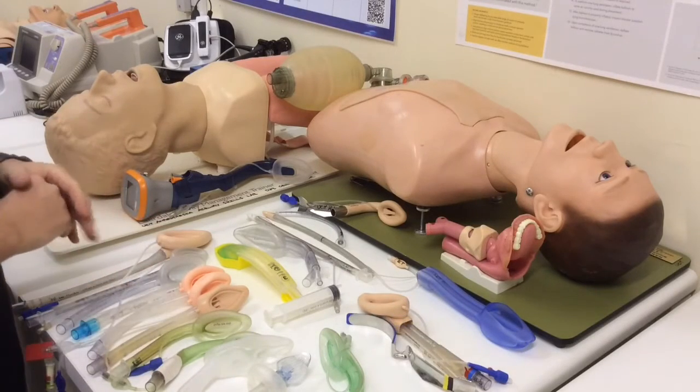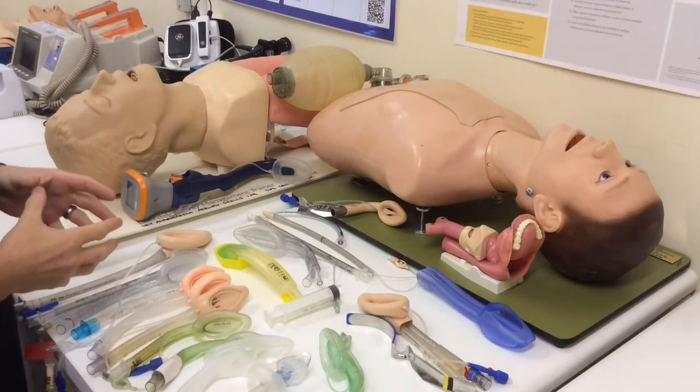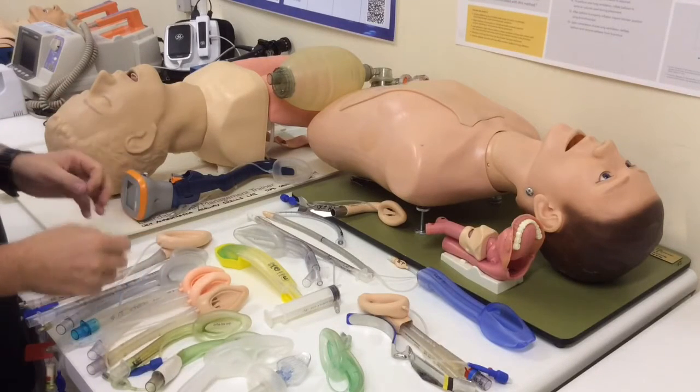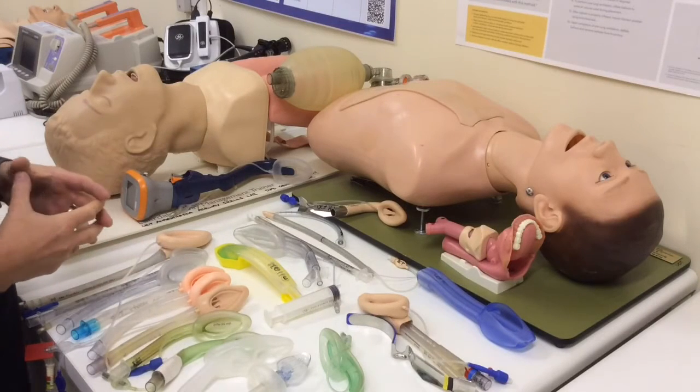In this quick video I want to talk about the indications, the selection of a supraglottic airway, the precautions of when it might not be a good time to use, how to pick the right size, place it, perhaps one or two tips about just troubleshooting a little bit and using it for ventilation.